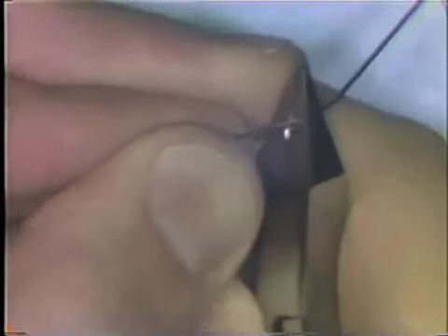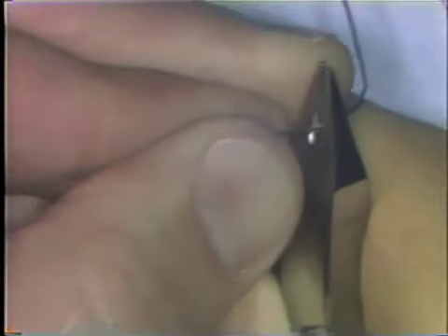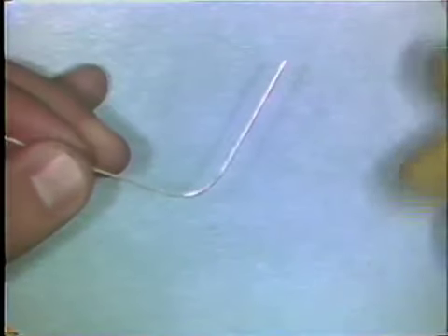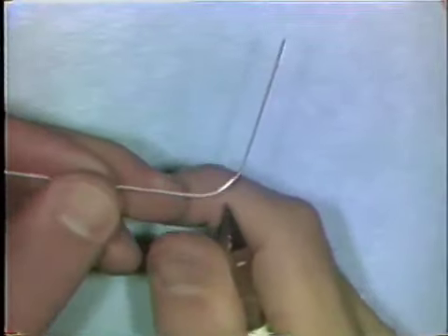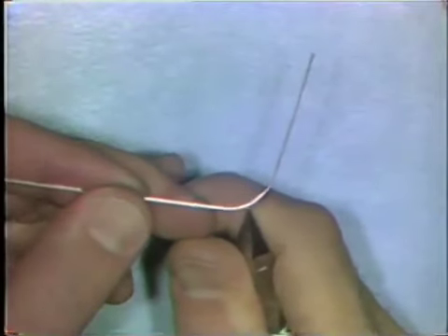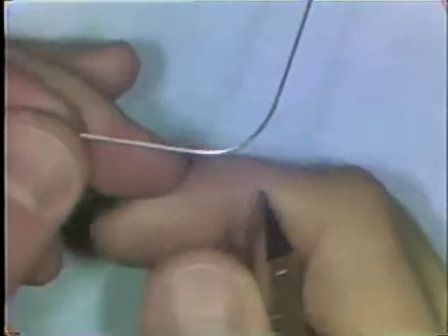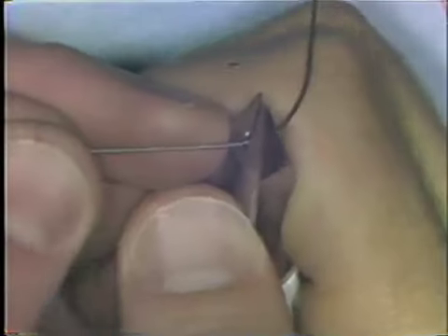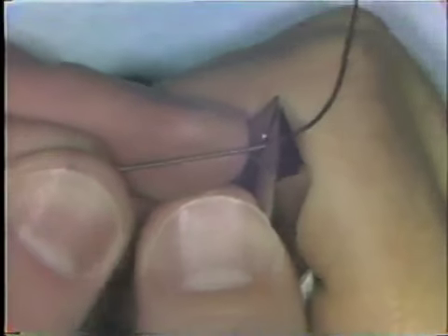You slide the wire along through the beaks and apply pressure. Your fingers can be a little bit away from the plier beaks for formation of a curve. You'd like the curve to be smooth and continuous. To adjust a curve to make it fit the arc that you'd like, you sometimes have to flatten out areas that are overly curved. You do that by placing the curve in the flat base portion of the pliers and squeezing it. And this will open up the curve a bit.